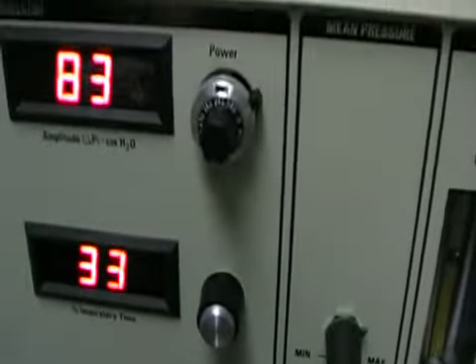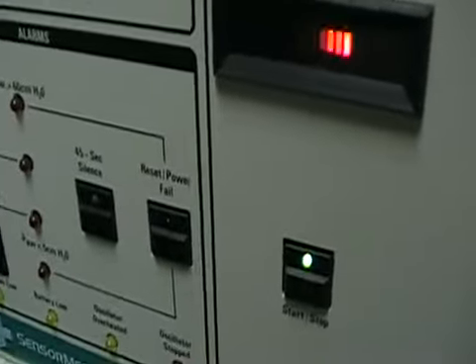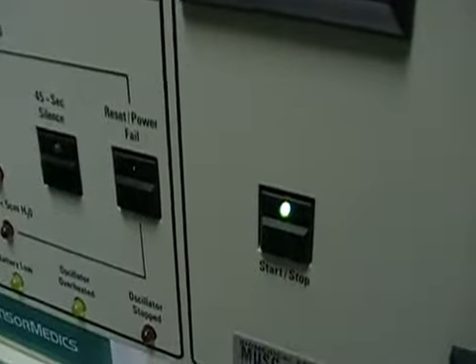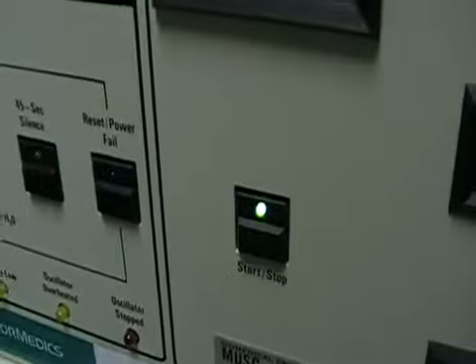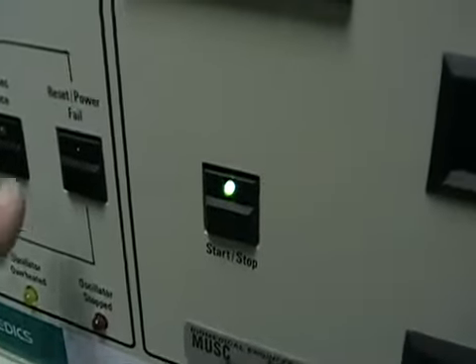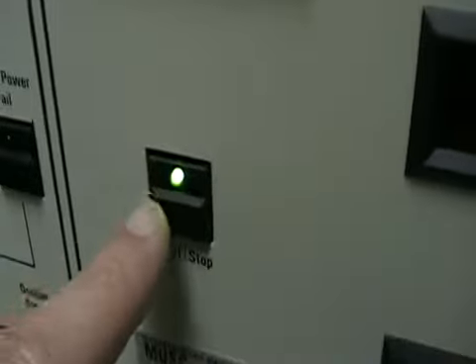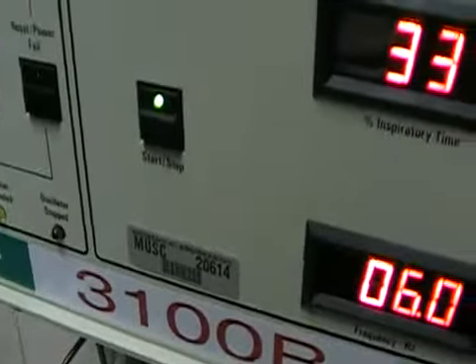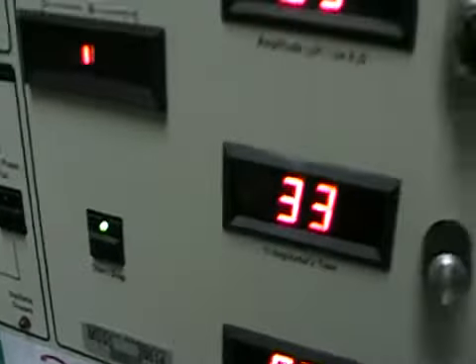The next important thing is what happens if the ventilator shuts down. Let's say we're turning the patient, or for whatever reason he becomes disconnected. In order for the piston to move, it has to have pressure in the circuit — otherwise it'll burn up. If we get disconnected for whatever reason, the first thing we're going to do is not panic. Push the reset button here and hold it until our circuit repressurizes. Then once we do that, we can hit the start/stop button on the piston and that will engage the piston and it'll start to move again. You can hit this all day long, but if there's no pressure in the circuit, the piston will not start. Always remember that.